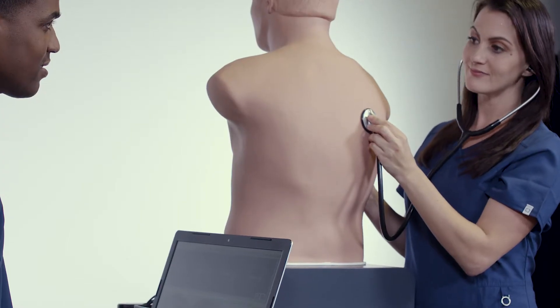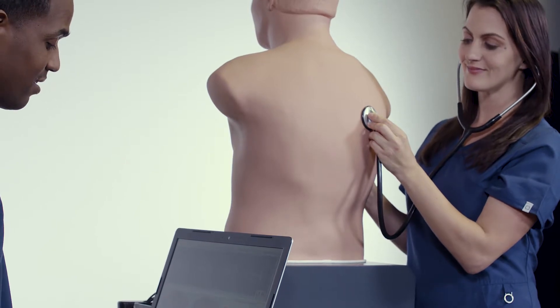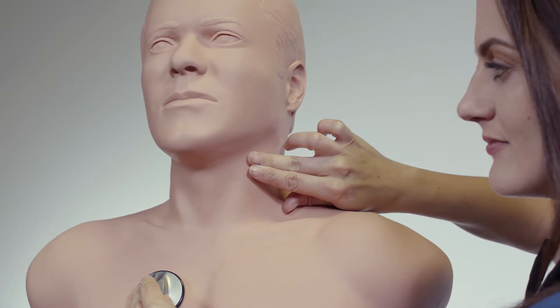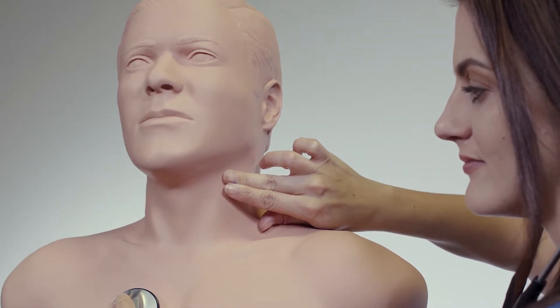The Real Sounds library provides an even more realistic setting for students to practice auscultation. SAM 3G also allows students to auscultate using their own stethoscope, helping build confidence in their skills.